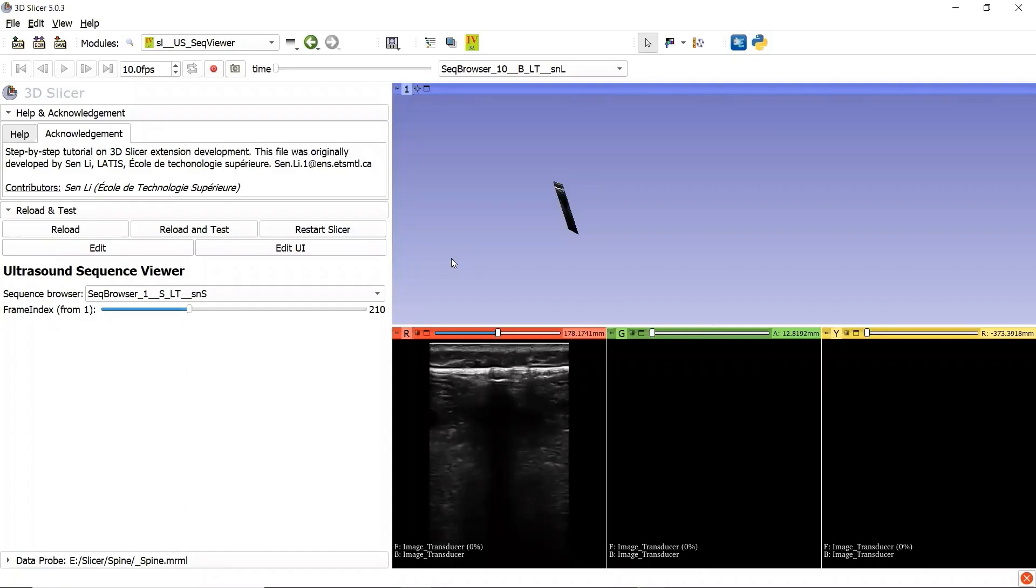Now we should be able to read the Python script easily. Let's take a look at the graphical user interface. We click the button Edit UI.